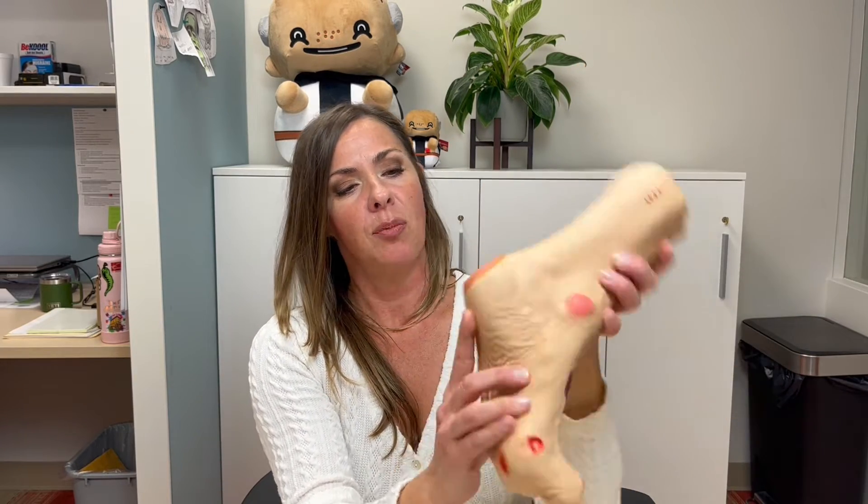The second item in this family is just the straight-up powder, which comes in a small packet all by itself. It's a granular kind of powder and would go straight into the wound bed itself. You would just dump it in there after some debriding. The reason for that is despite the fact that the pad can hold 20 times its own weight in exudate, you may have a deeper wound or a really odd-shaped wound. This powder will actually fill all of those odd nooks and crannies and get all the way down into the wound bed, adding more absorption power. You would then cover it with one of the Collactive Plus pads and a secondary dressing for extra protection and healing.